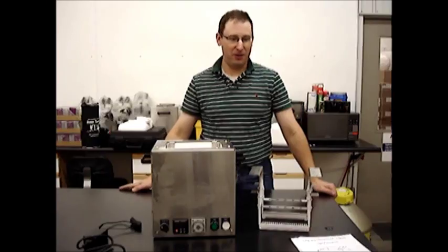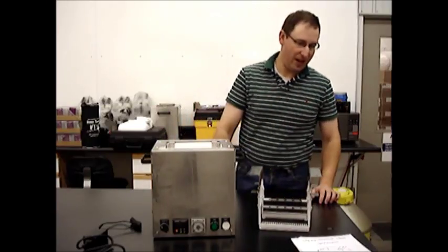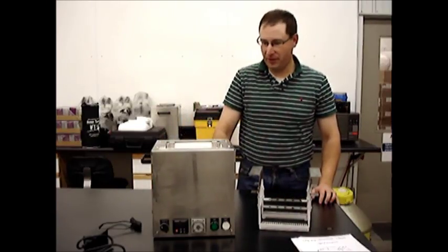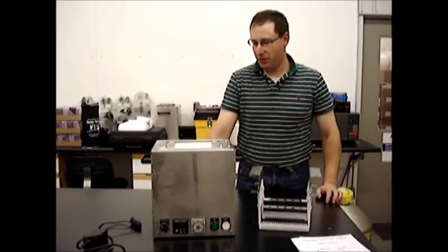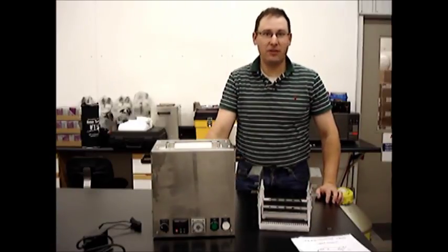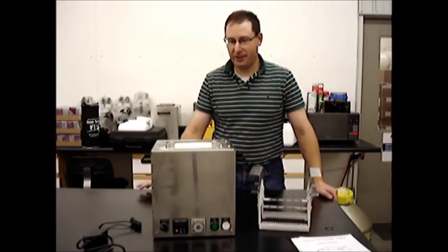Thank you for taking some time out of your day to learn a little bit more about the L1000 manual semen freezing system available exclusively from Agtech here in the United States. We're based in Manhattan, Kansas.